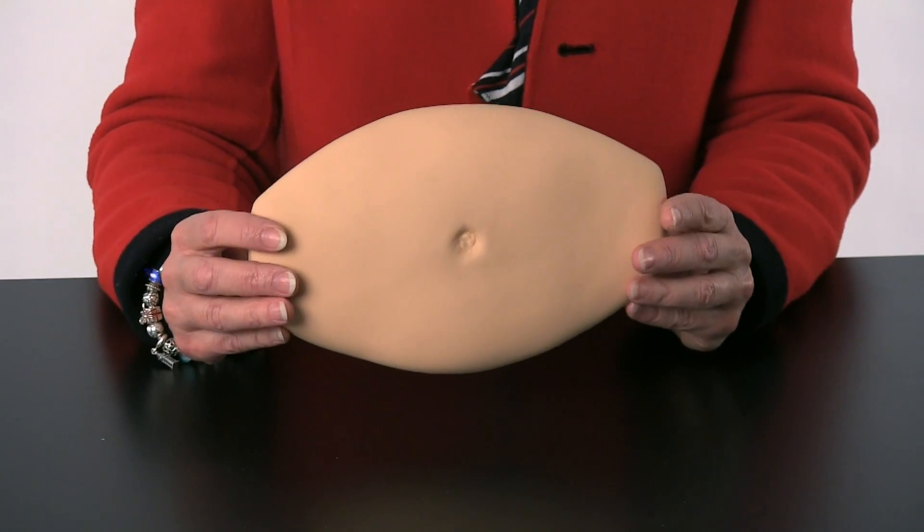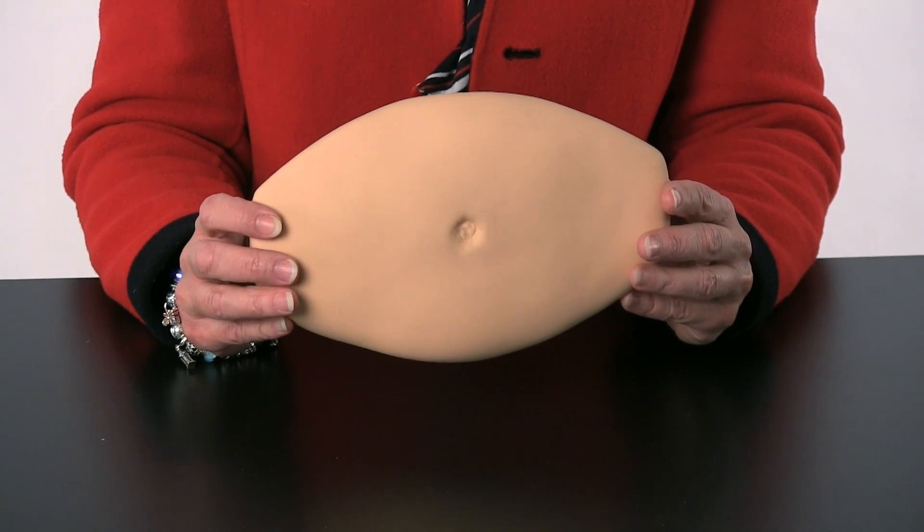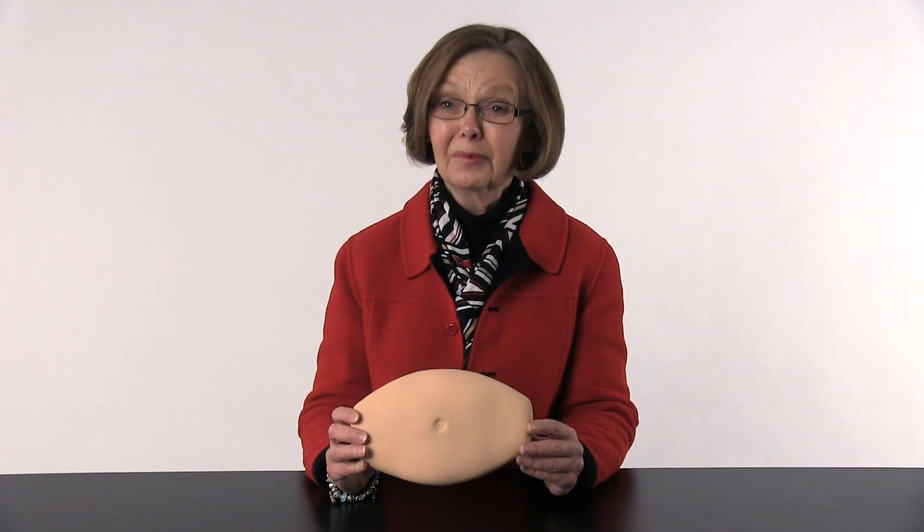Since that time, it's been used for many different things, and we have customers that tell us how useful it is to have patients learn how to give injections for things besides diabetes. It works great to teach people how to give an injection.